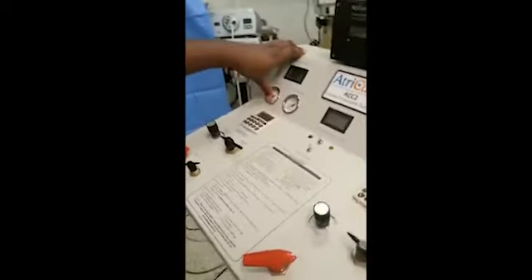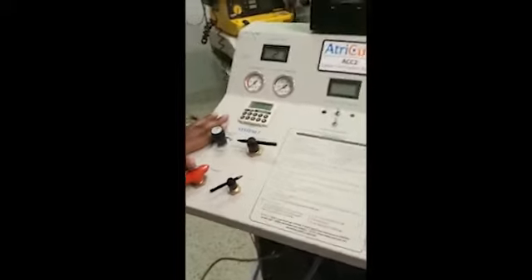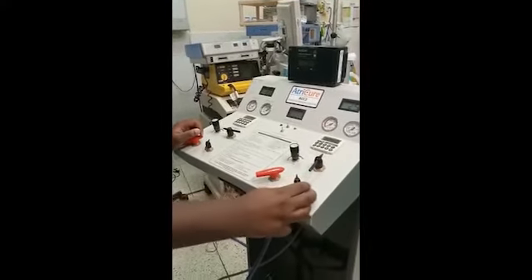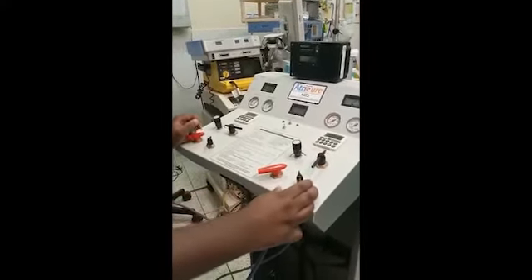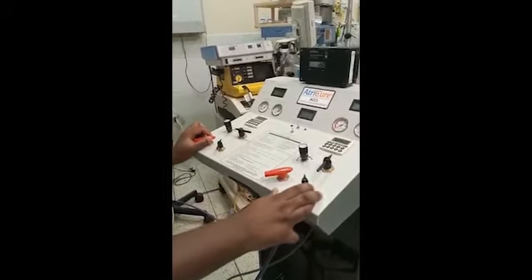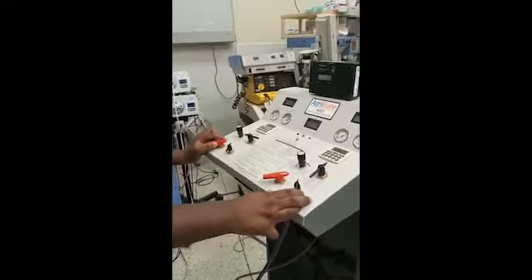This is our cryo surgery system machine. To connect it, we have the cryo machine and cylinders. The cylinder we use is medical grade nitrous oxide only — that is the cylinder used for this machine.